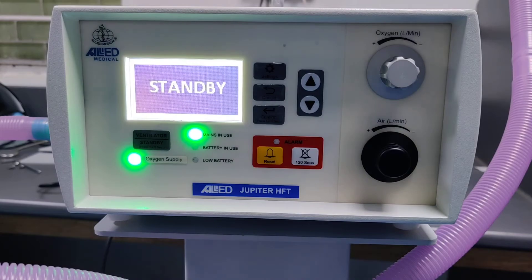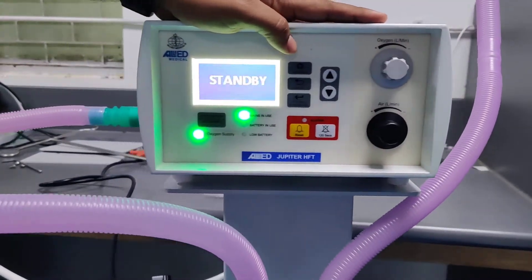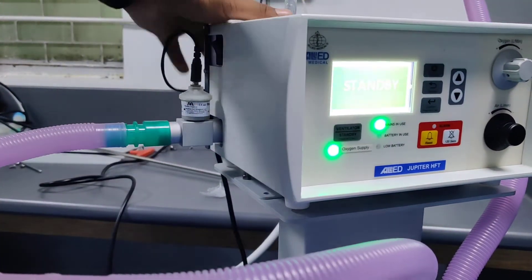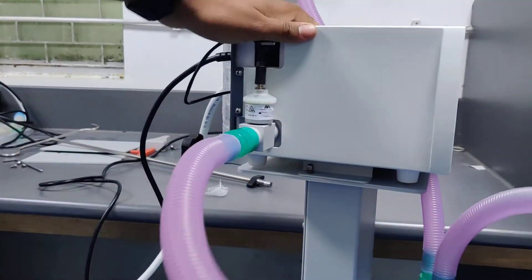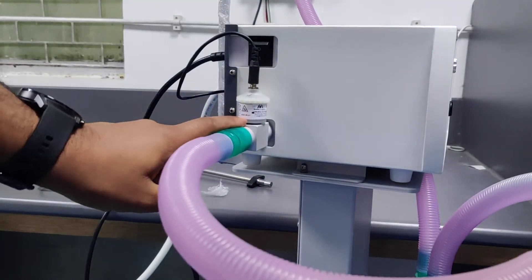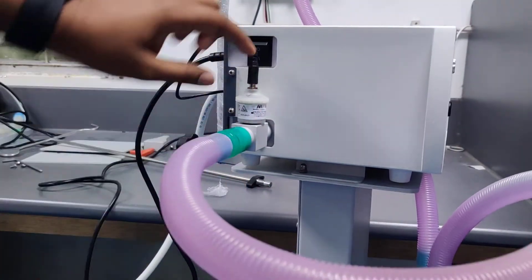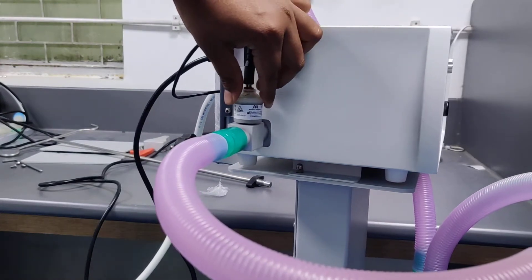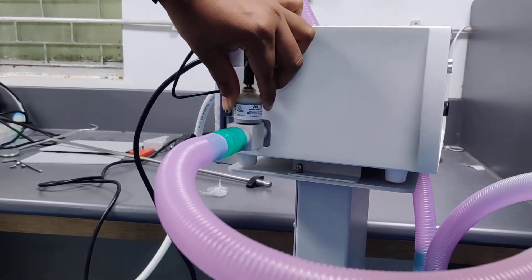Now showing you the different connections of this machine. This is the connector where you have to connect the patient tubing, and this is the oxygen sensor which tells you the FiO2 value being given to the patient.